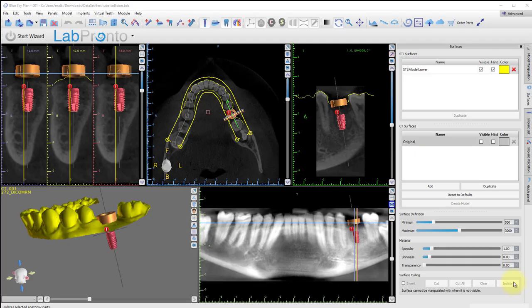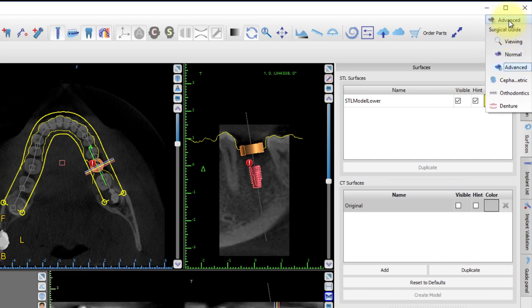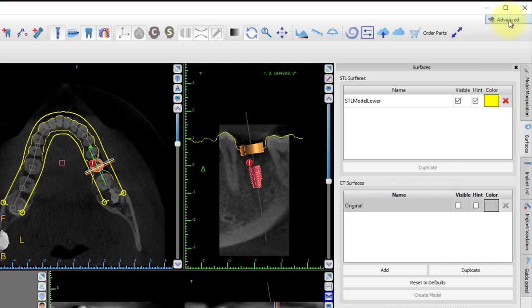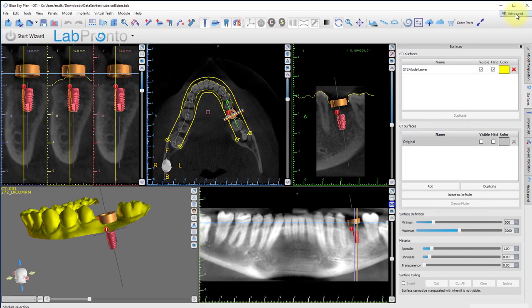Outside of the wizard, normal and advanced modes handle guide tube collisions the same way. You can switch between normal and advanced by clicking in the upper right corner drop-down menu and selecting the mode. This demo will continue in advanced mode. The plan shows a visual collision between the guide tube and the model.